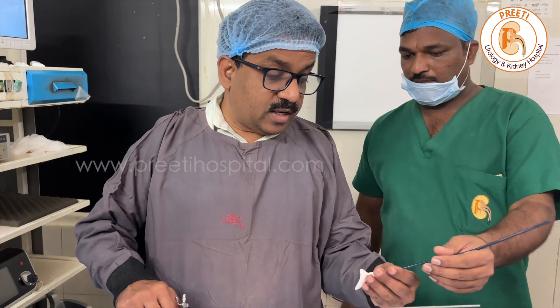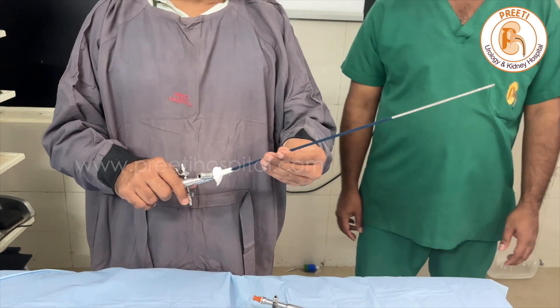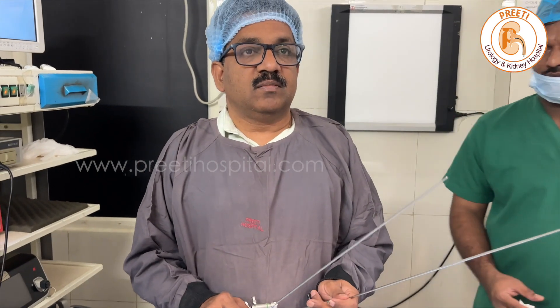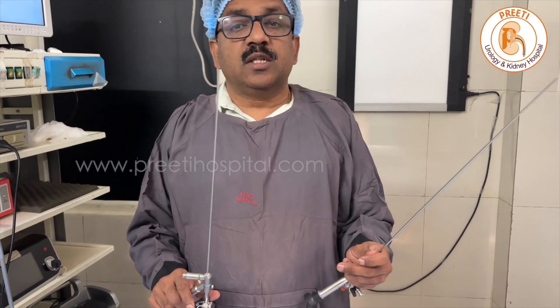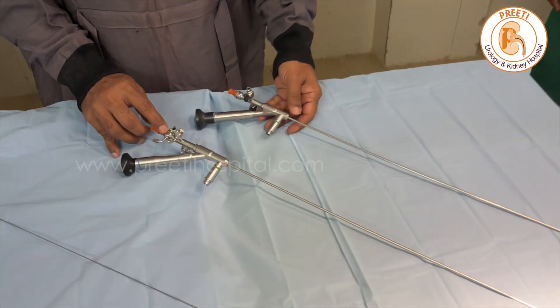We are passing instruments and they are going as well. So this is absolutely a replicated scope — Biorad and Wolf. Left is Wolf, right is Biorad. In the Biorad, the easily visible difference is they have written '3' here.